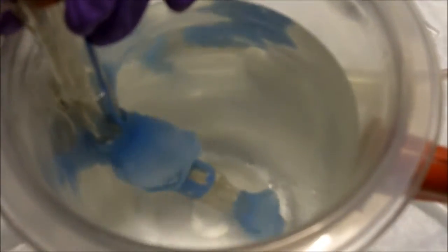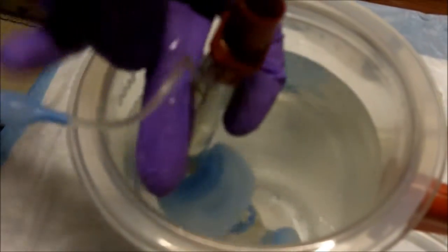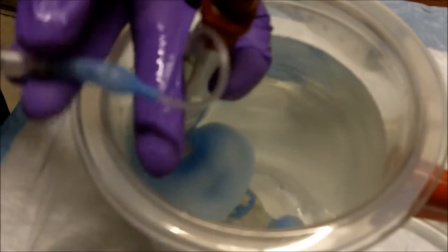Once you are in place, you're going to inflate to the approved amount of air. And in this number four, we're at 60 to 80. I'm going to inflate to full 80 so that you have the effect of seeing its value. Notice how I haven't let go of the tube once I've inserted it.